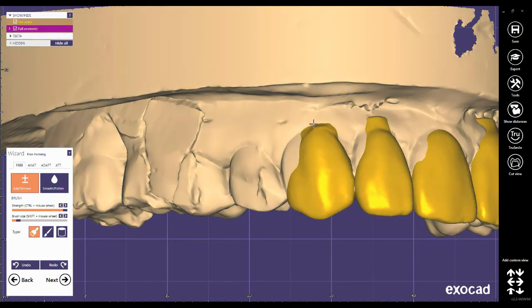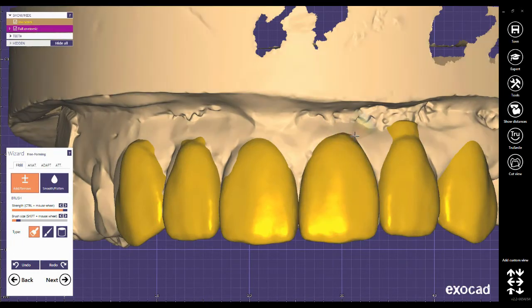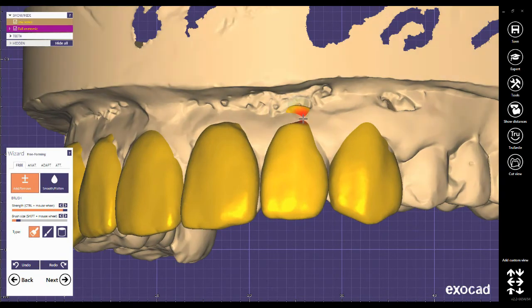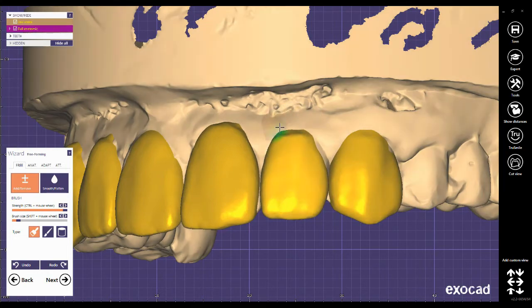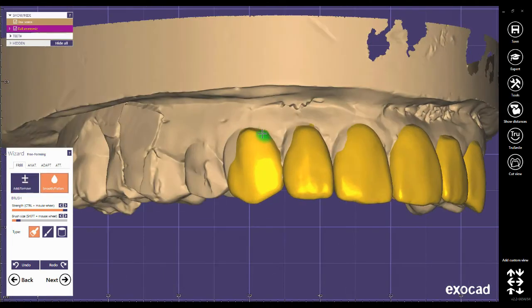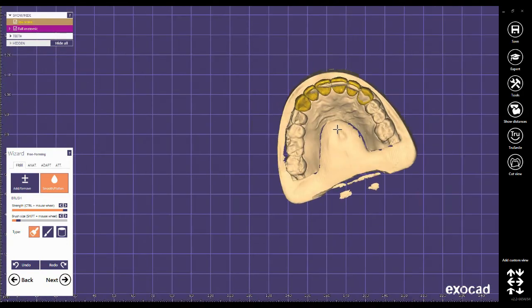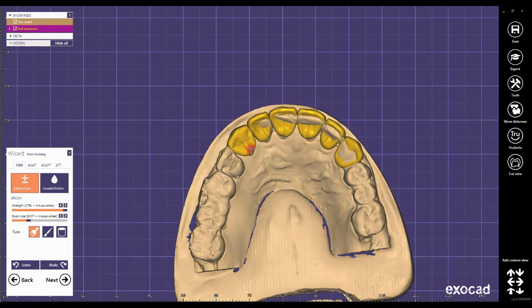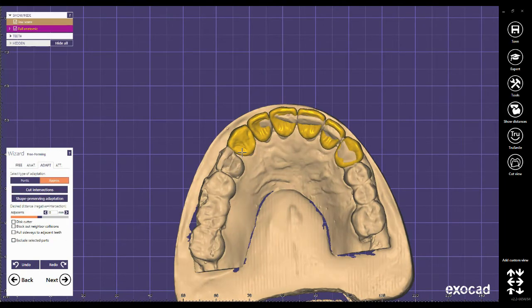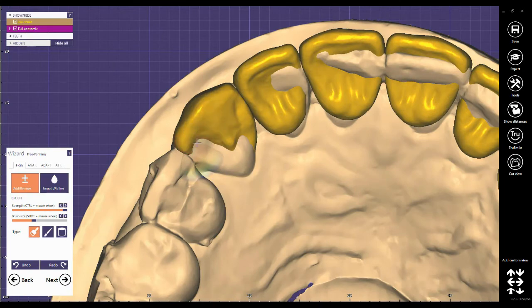In the tab, I choose the free form and I modify the teeth near the margin lines. I use adaptation and also free forming for the lingual side.